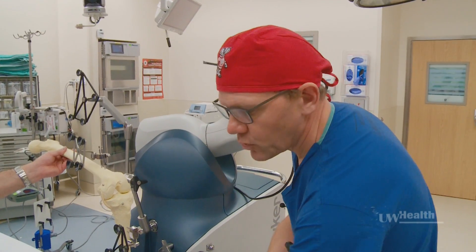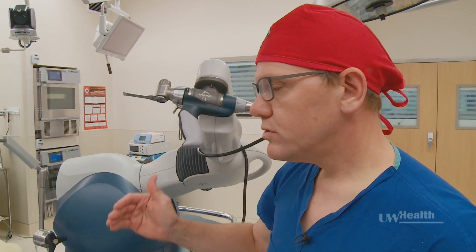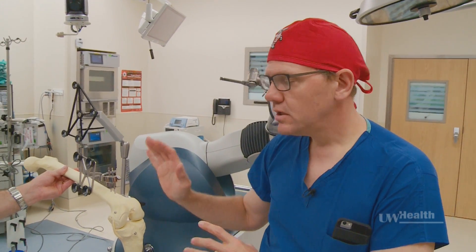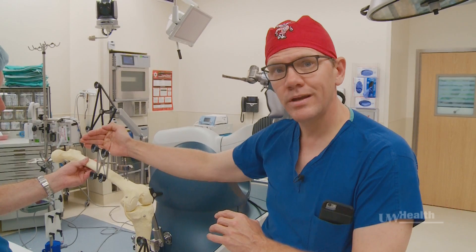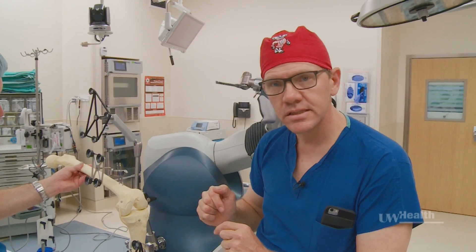In order to improve accuracy and reproducibility, we started introducing robotic assisted surgery. So instead of using plain x-rays — a two-dimensional image — we're now using a CT scan, a three-dimensional image. We can plan substantially more accurately because of that.